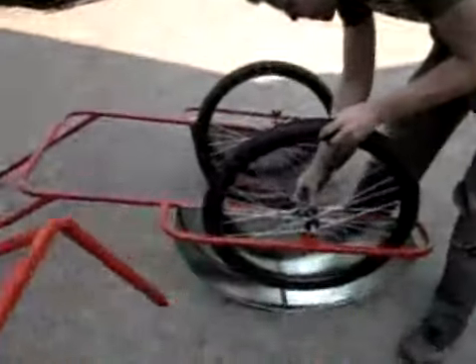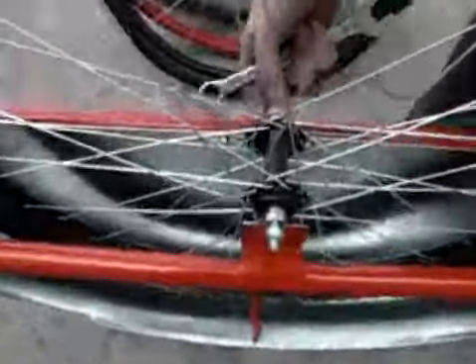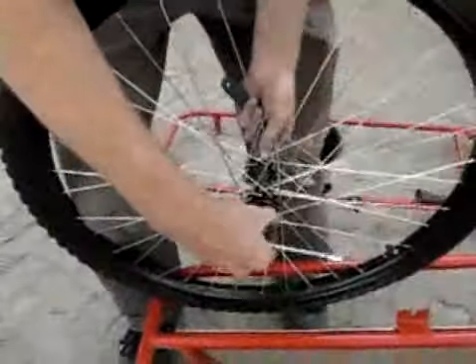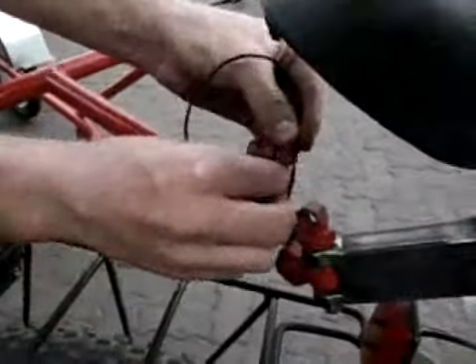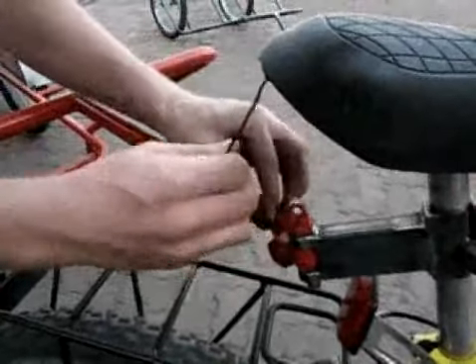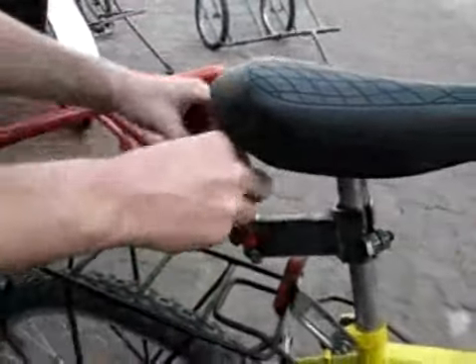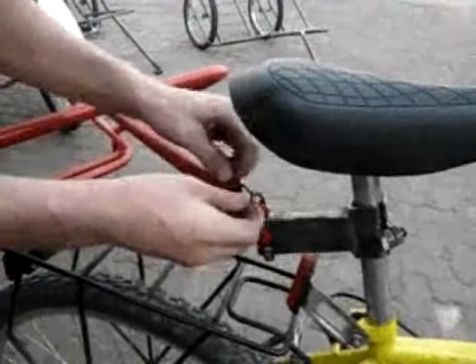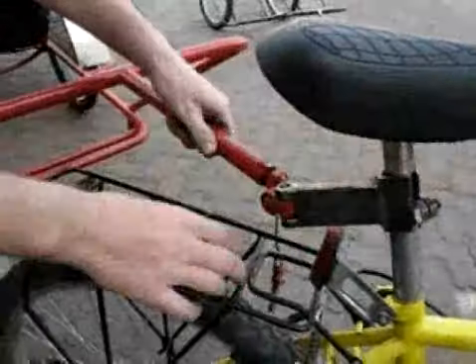Use 26x2.1 inch tires on standard front mountain bike wheels. Most wheels will have a 100mm dropout spacing, but if the hub has a smaller spacing, use washers to fill in the gap. Check that the hubs are properly adjusted. Fill tires to 200kPa and attach the wheels to the ambulance trailer frame, ensuring that they are both parallel and vertical. Attach a 35cm long piece of string to the nut on the hitch pin and the other end around the first bolt on the pulling tube. Attach another piece of string between the head end of the backrest and the stretcher frame while the backrest is hooked on the 5th loop of the chain. This will limit the motion of the backrest for safety.